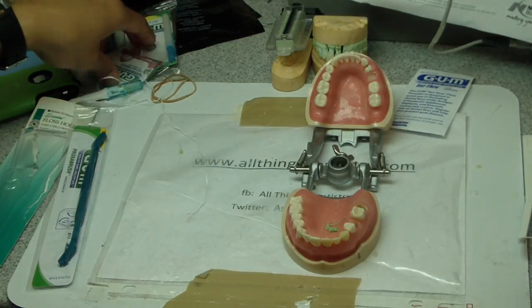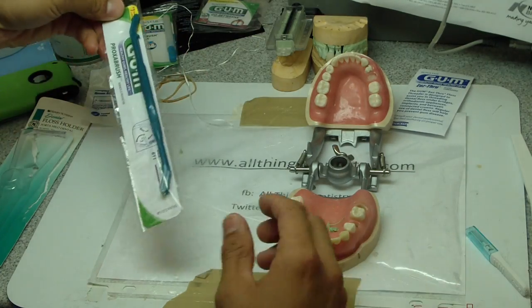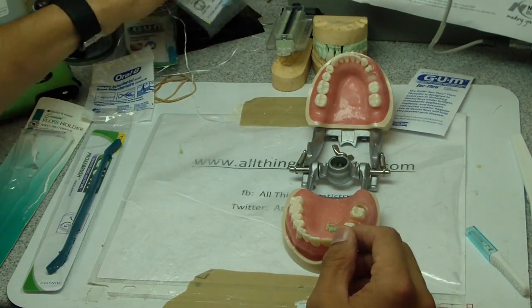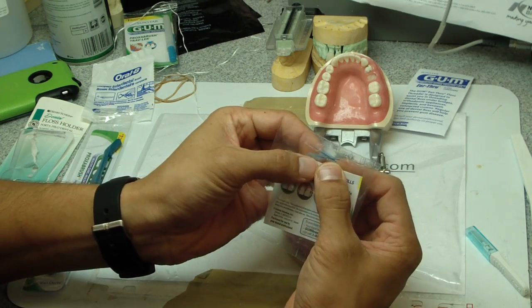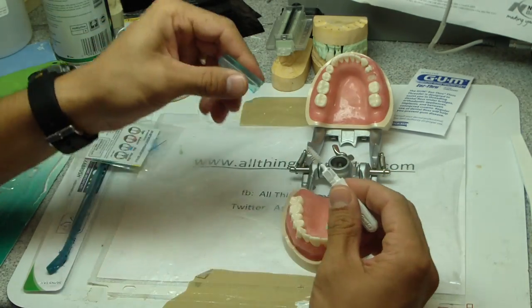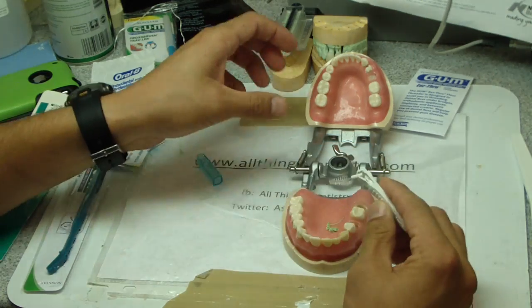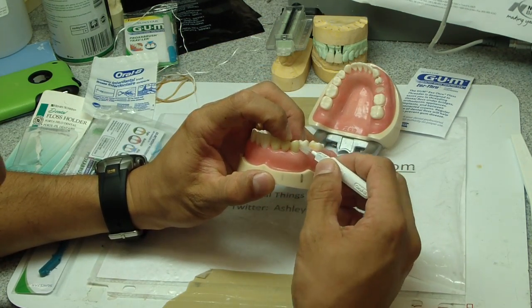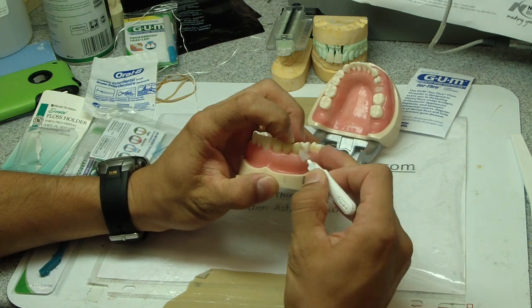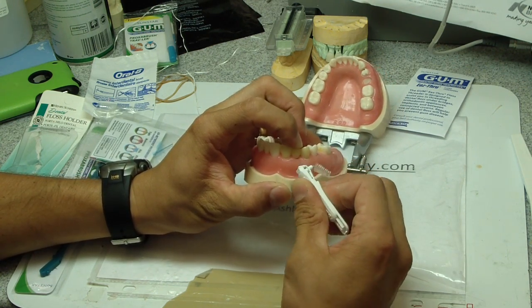Next we've got our series on little Christmas trees — what's called a proxy brush. They're little Christmas trees. Here's a travel version too. You can put that in and use this for regular teeth as well between them. It just goes in there nice and light, in here nice and light — and this one bends for different angles.